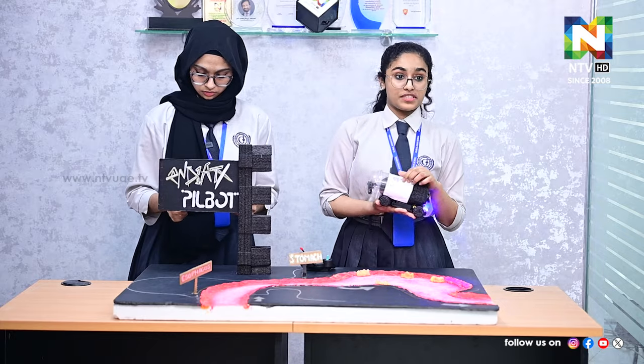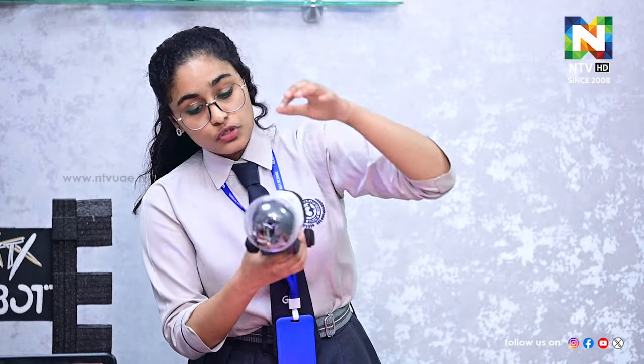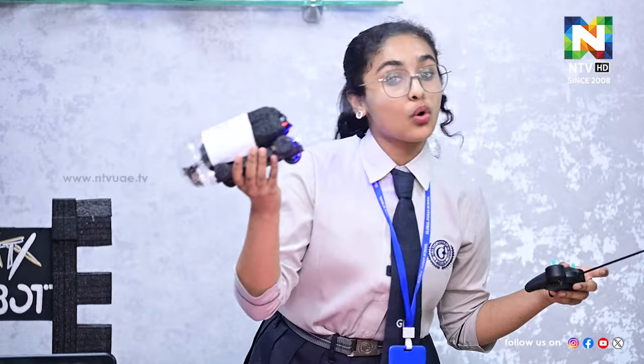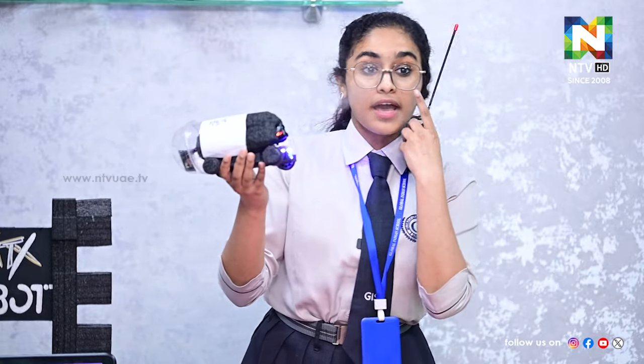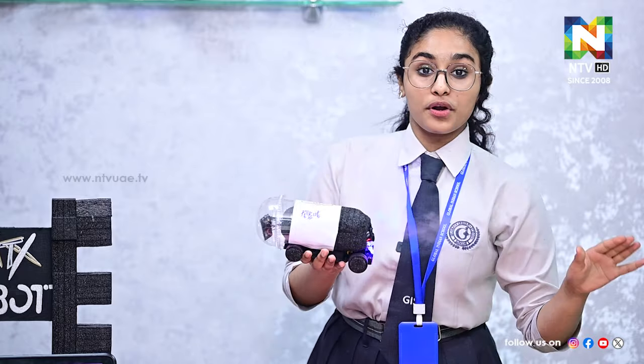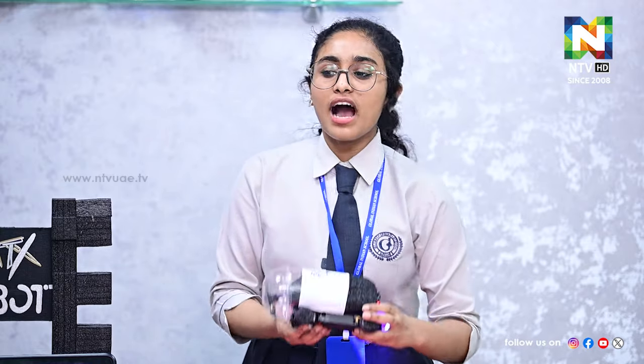In the future it will be small, and with the help of nanotechnology we can make it even smaller. The pill robot has a pill camera inside it which replaces endoscopy and colonoscopy. It has pump-jet thrusters — what you are seeing right now is not smoke, it is water — which help it glide through the stomach. The camera is protected with a biocompatible lens, so you never need to worry about rupturing inside your stomach. It also has LED lighting because inside the stomach it's dark and we need to light up the area.